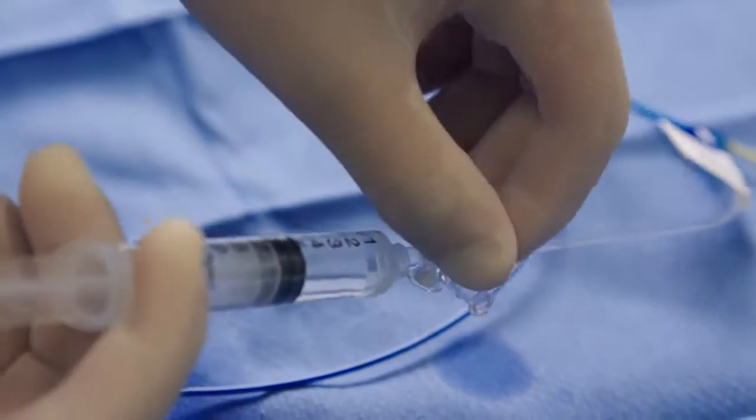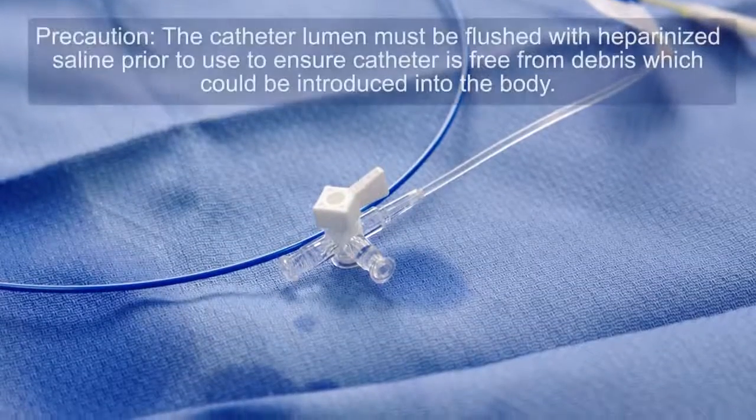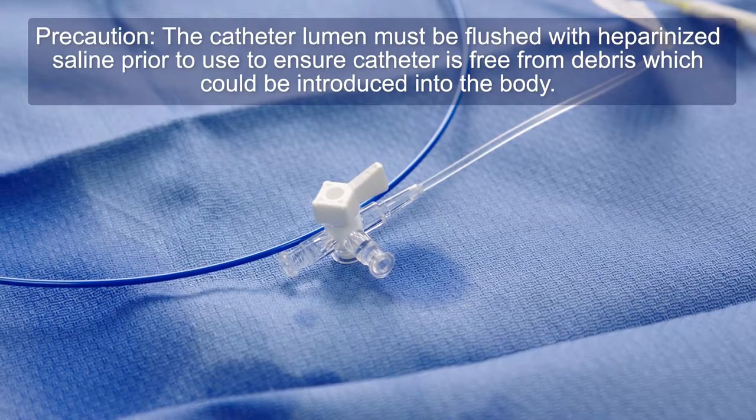Turn the outer lumen stopcock to the off position. Precaution: the catheter lumen must be flushed with heparinized saline prior to use to ensure the catheter is free from debris which could be introduced into the body.